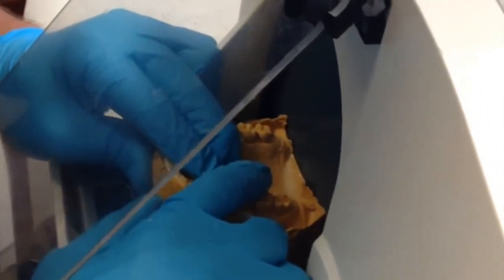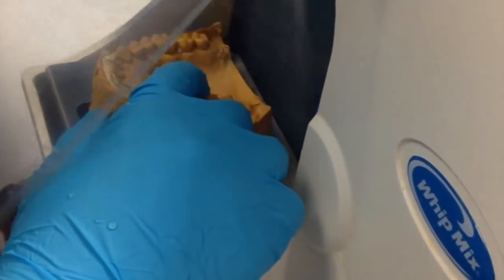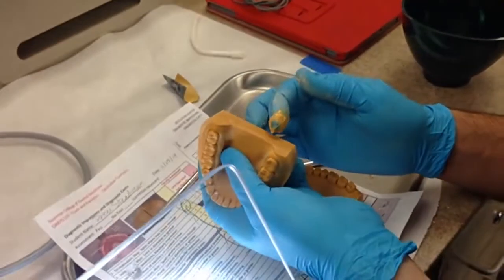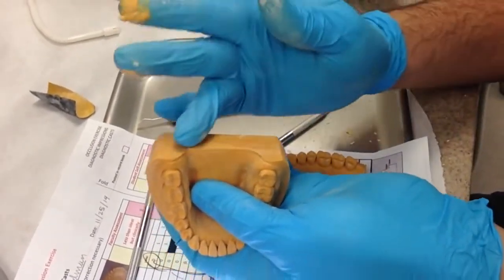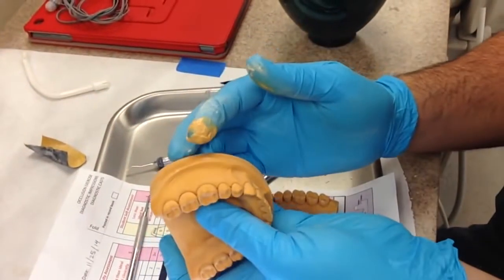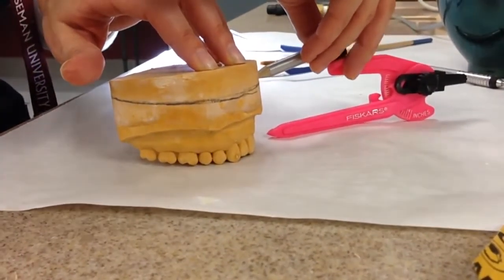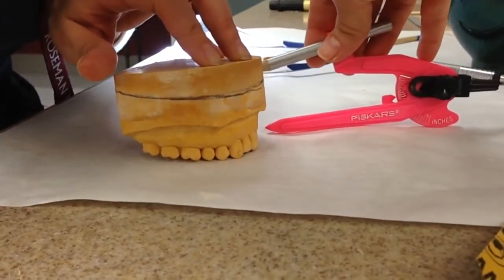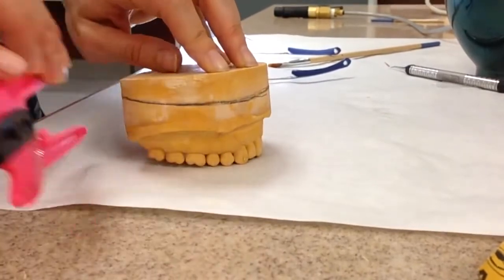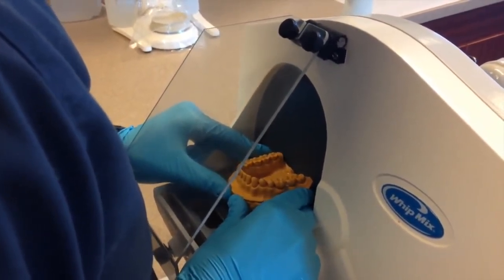The base will look very messy when you're done, so you'll want to trim it down. Hold it firmly with two hands and press it gently against the grinding wheel. For thicker areas, you'll push a little harder. Once you're done trimming, you may find some air bubbles you didn't see before in your cast — fill these in with a little extra stone. Use the compass provided by the professors to make sure your base is level. Trim it down so there are 90-degree angles on the back and on the base.